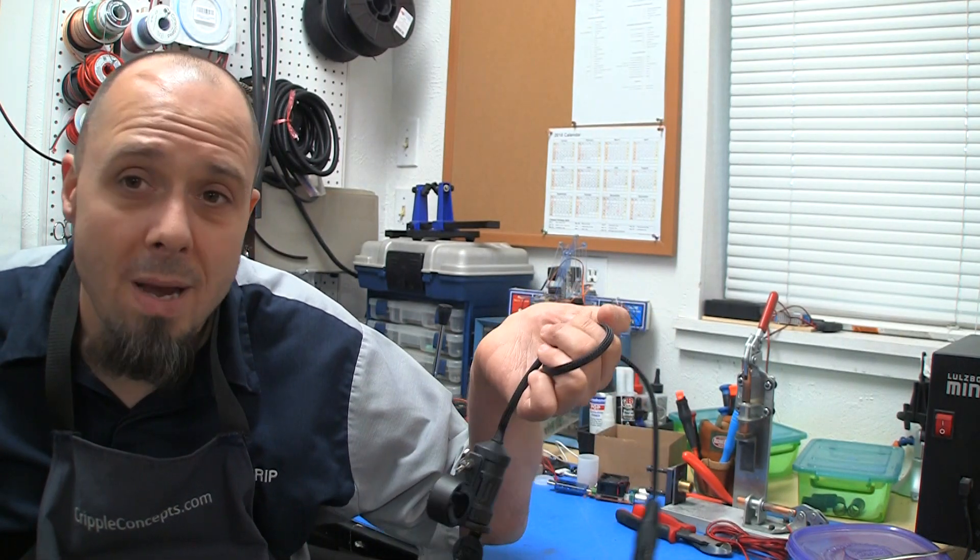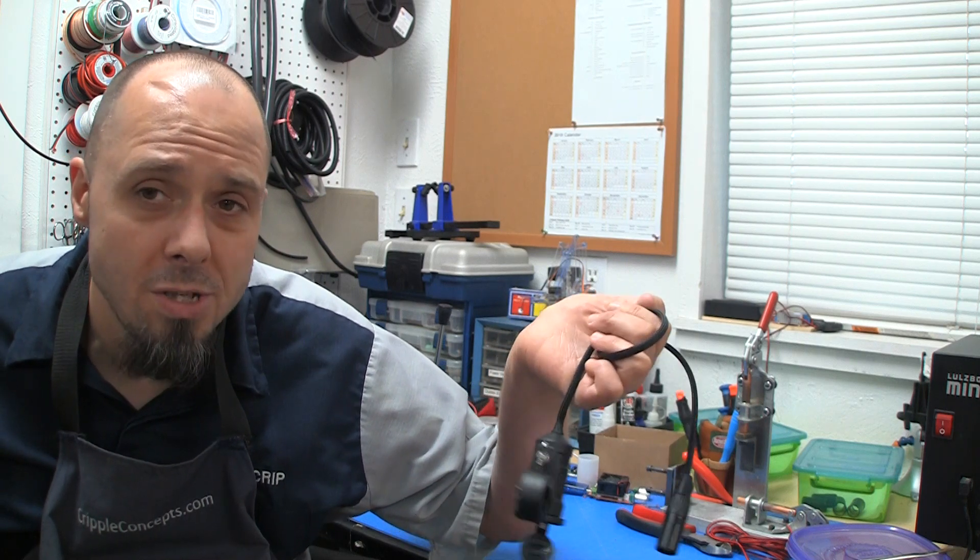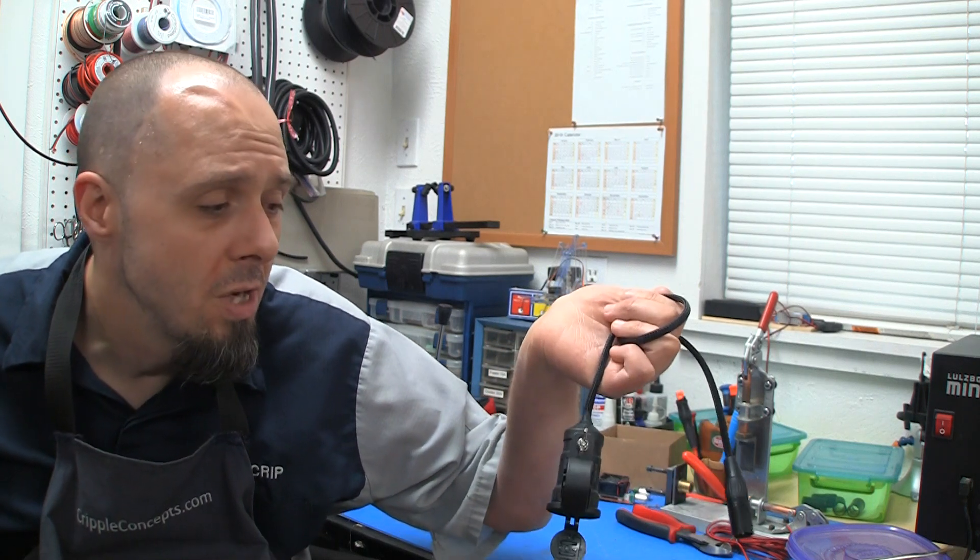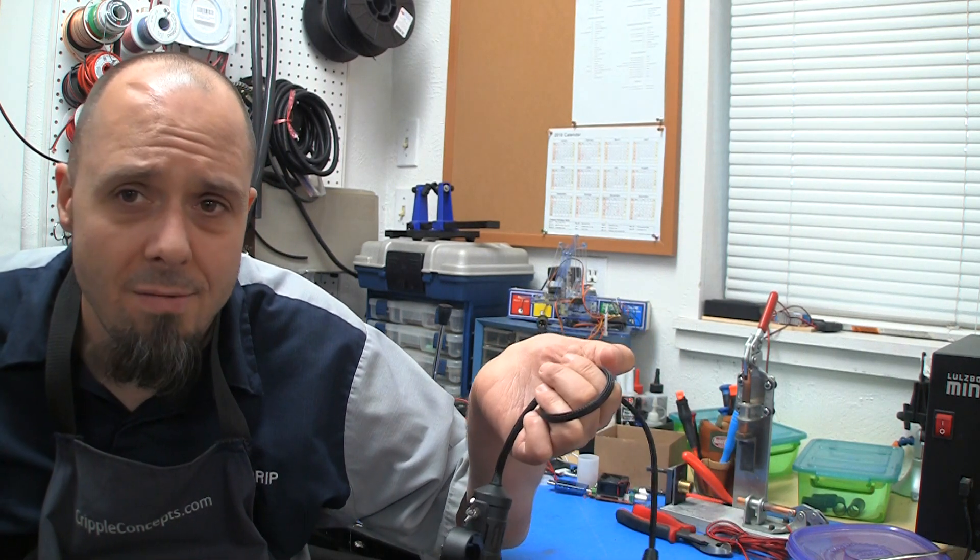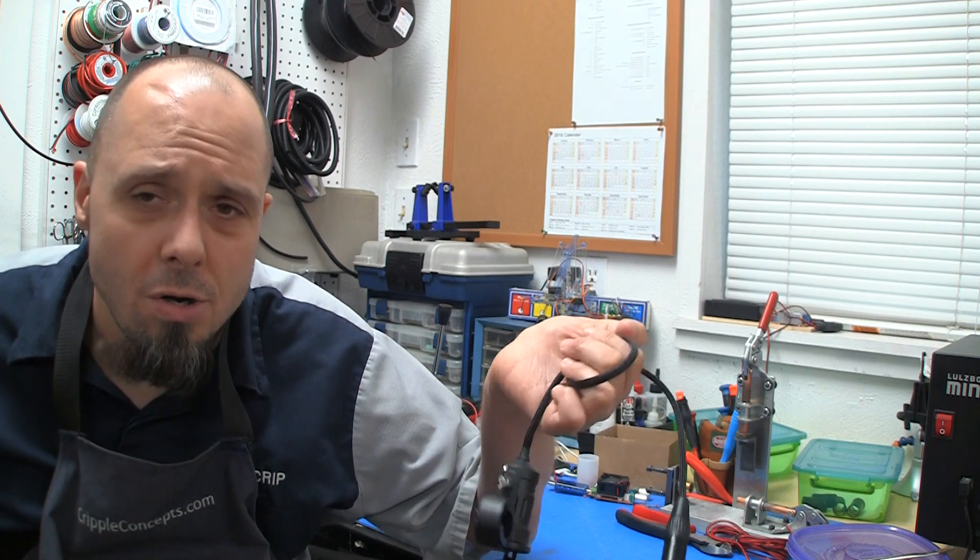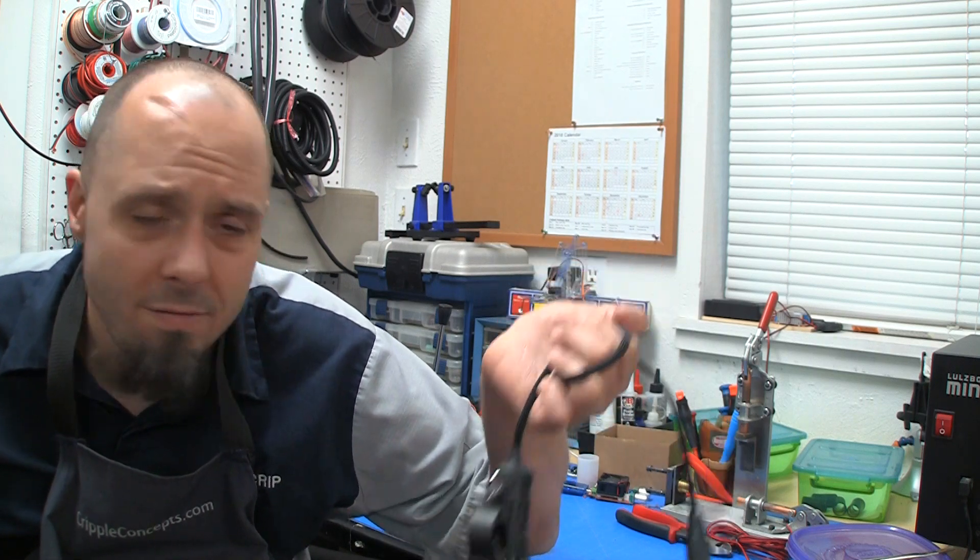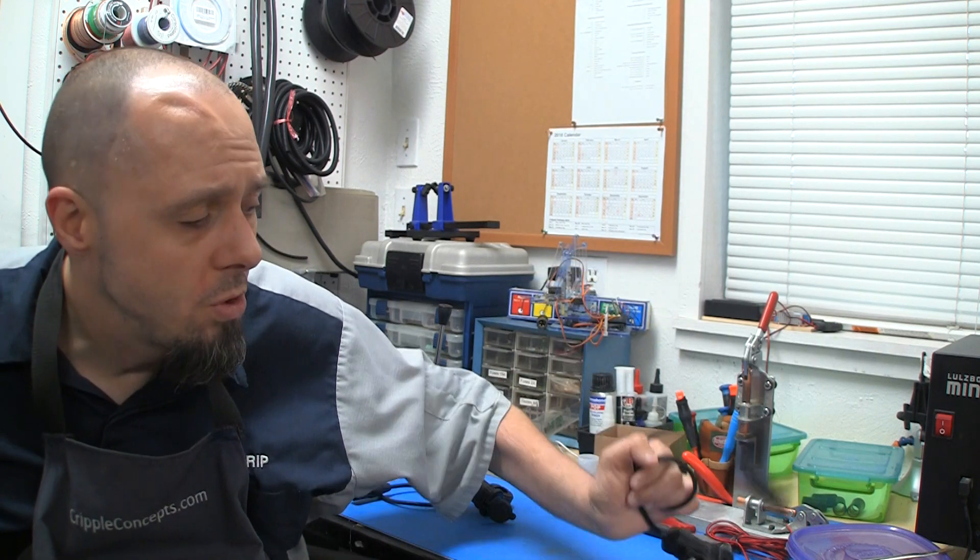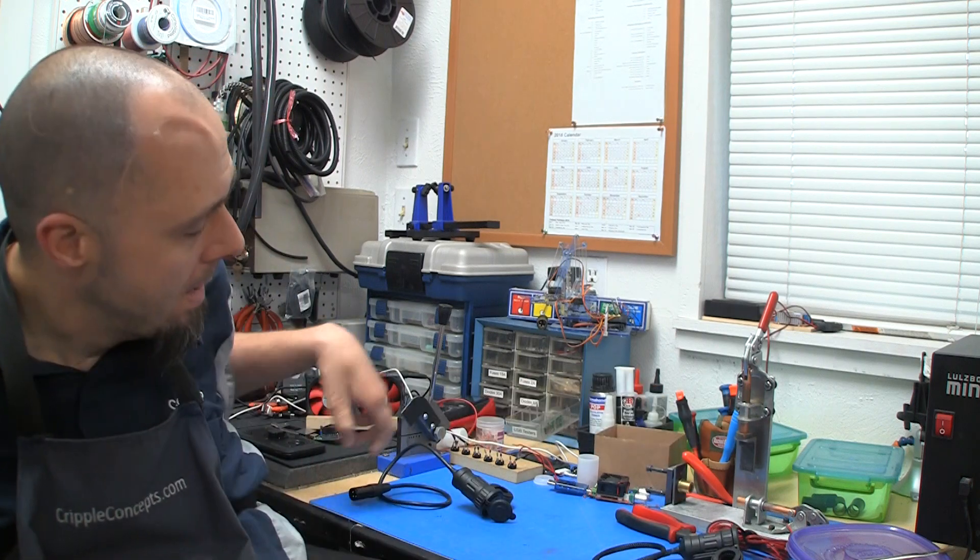The majority of the ones I sell all are in the same position. Once in a while, there's a chair that they've mounted the charge port funny. So a good basic charger, this one's pretty basic. This one would be comparable to our little standard chargers. You know, you got two and a half, or two amps, two and a half amps all day long at five volts, which is what most cell phones actually charge at.